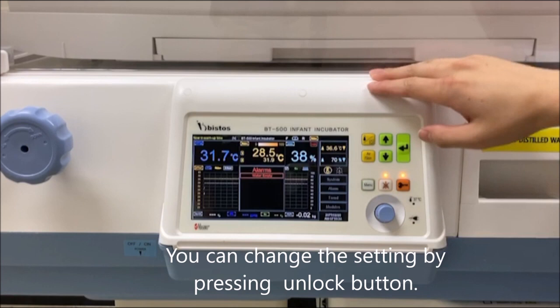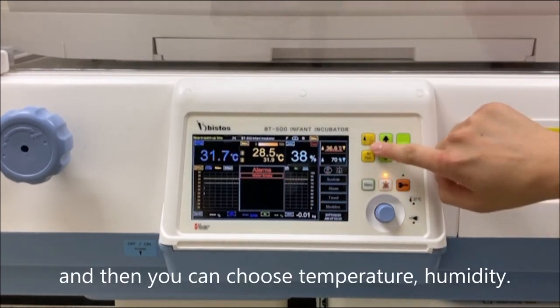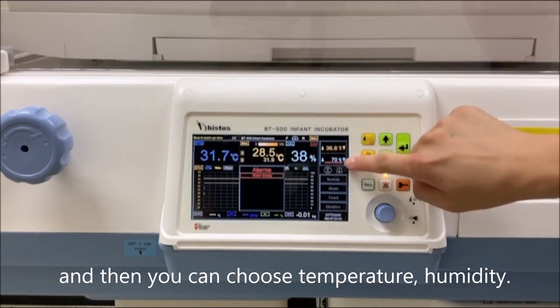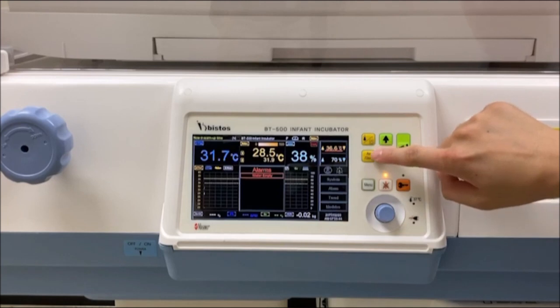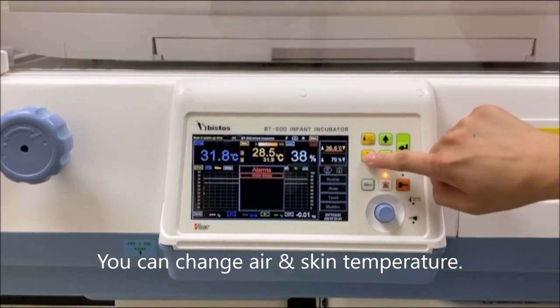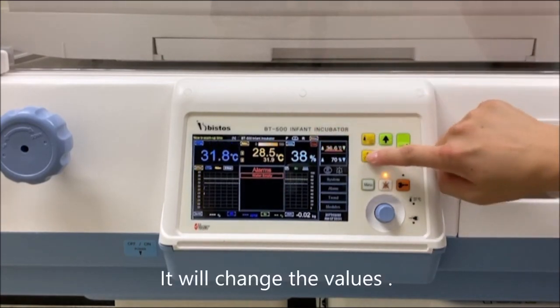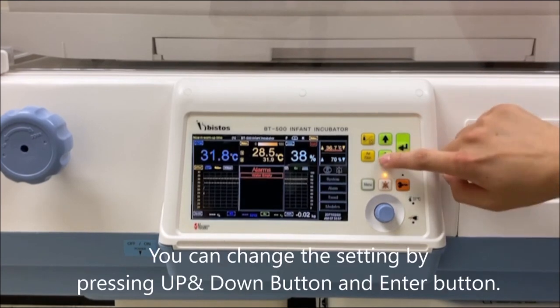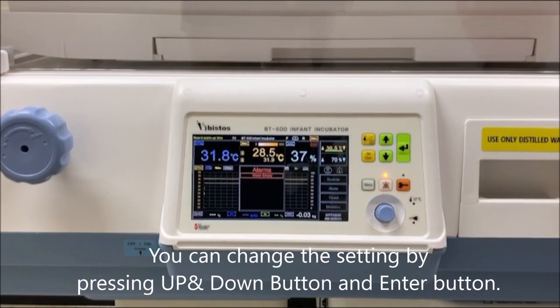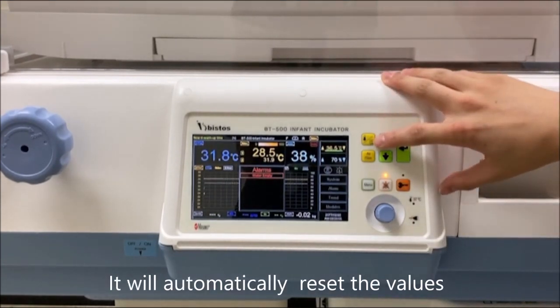You can change the settings by pressing this button, unlock the key lock, and then choose between temperature and humidity here. You can change the skin, air and skin temperature by pressing this button — it will change the value here. You can change the setting by pressing up and down on these buttons, and then press enter, and it will automatically be set to the temperature that you want.